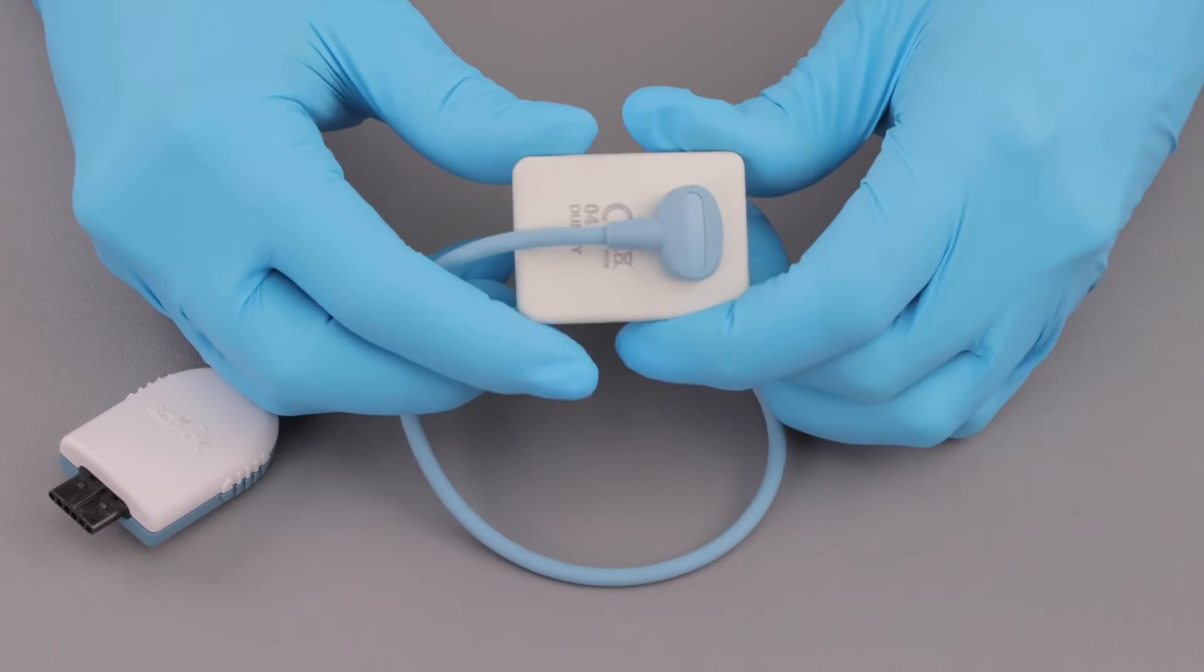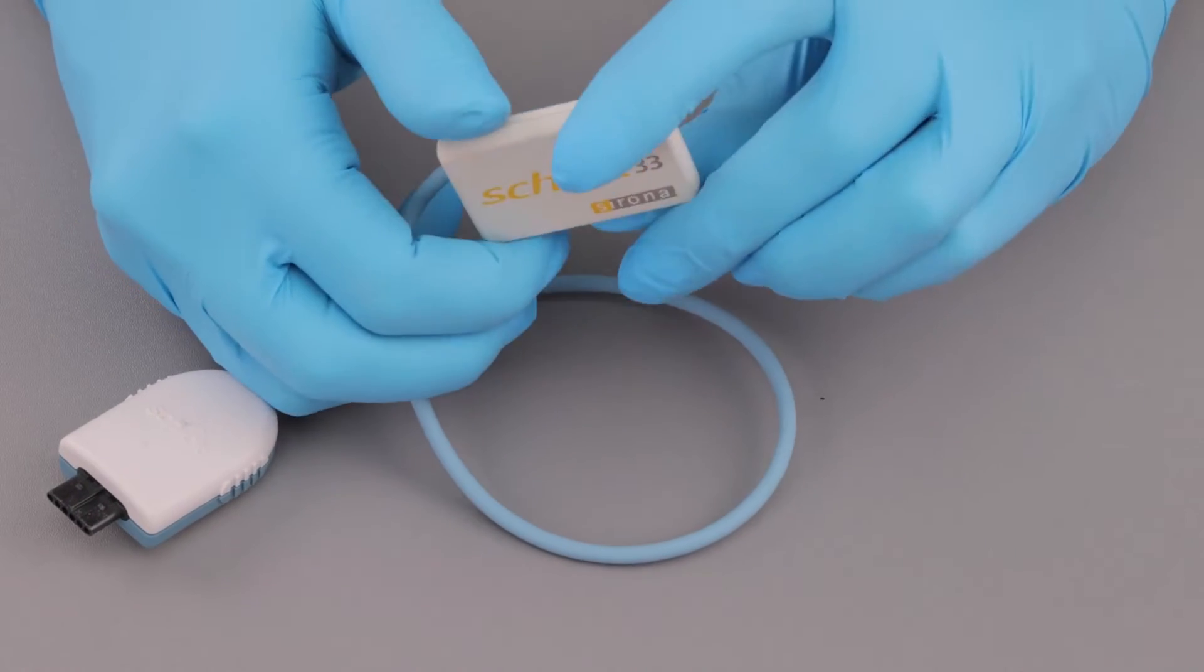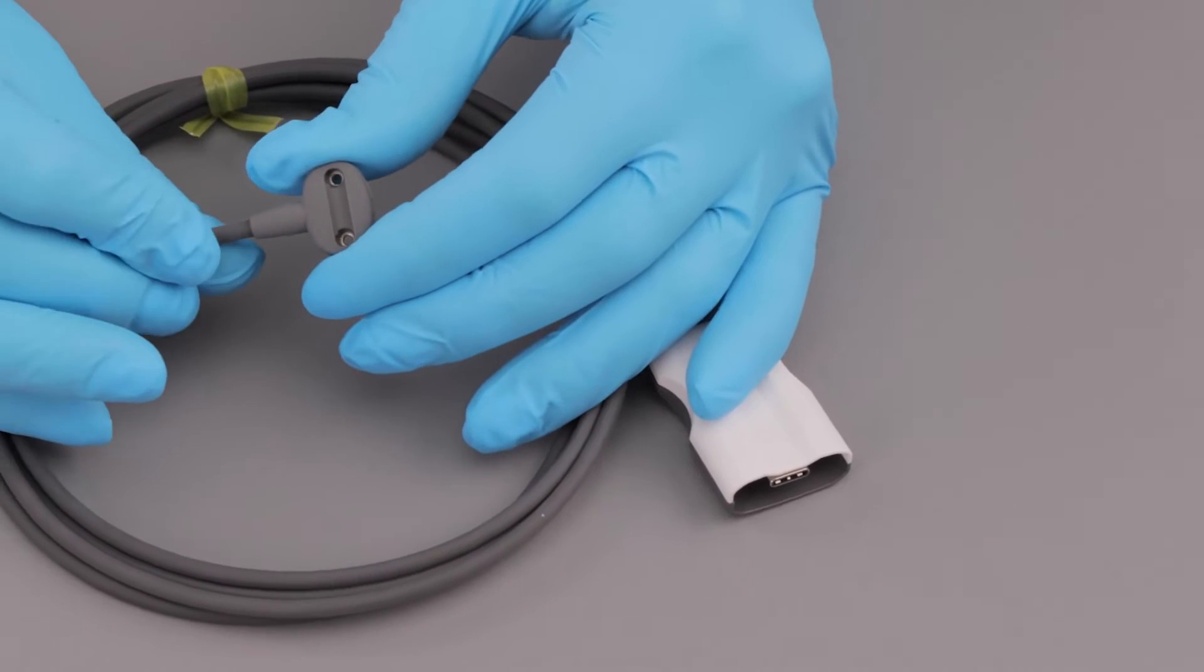This short video will help you replace your blue Schick 33 2.0 sensor cable with a new gray Schick 33 3.0 sensor cable.